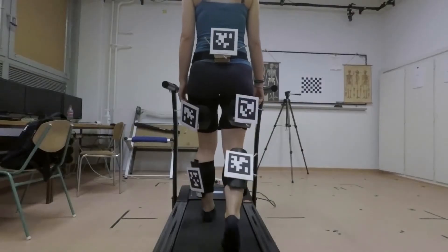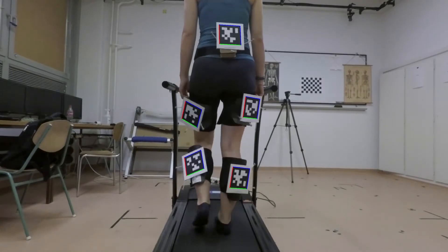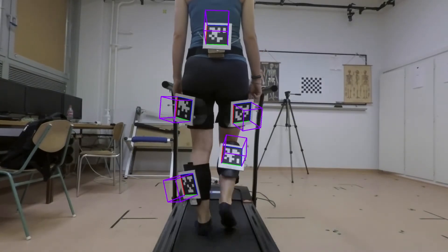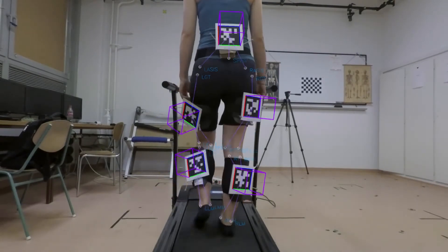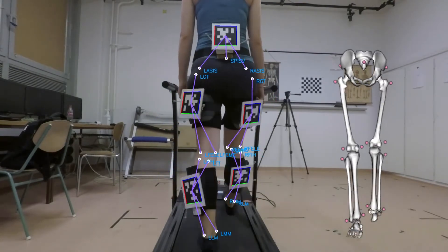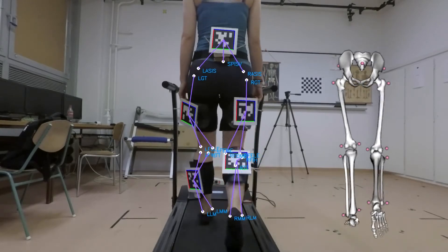An ArUco algorithm detects the markers. Homographic transformation is applied to calculate the marker orientation. Position of anatomical points are then calculated through homogeneous coordinate transformations.